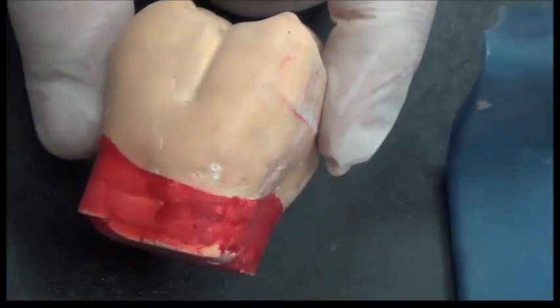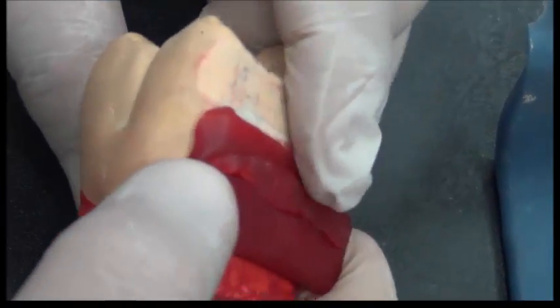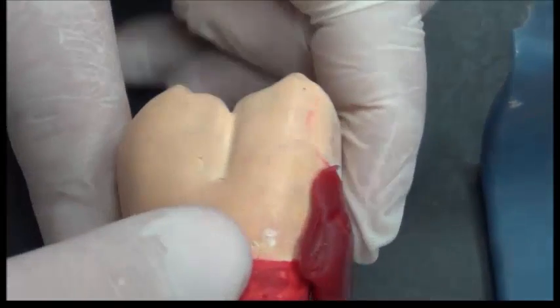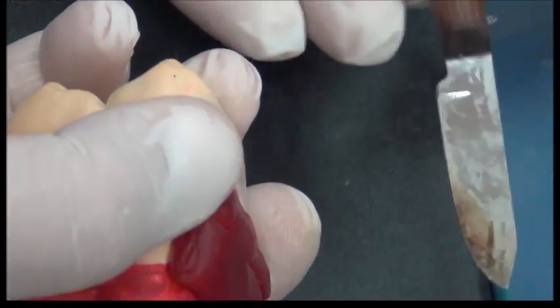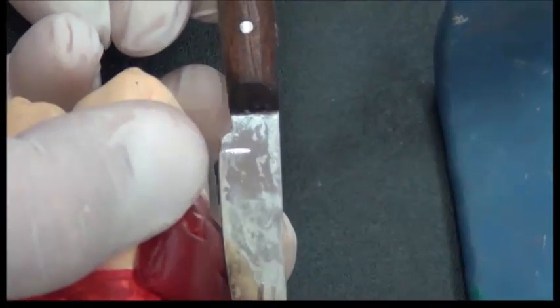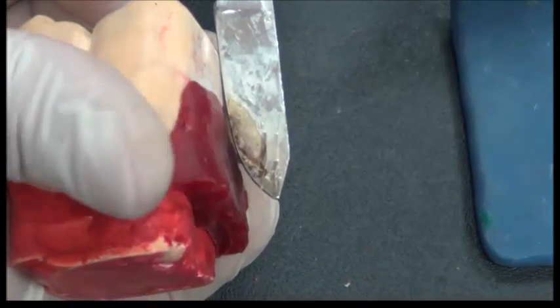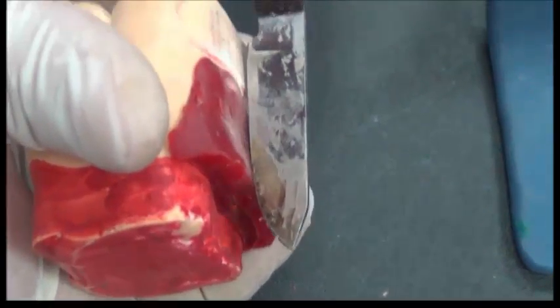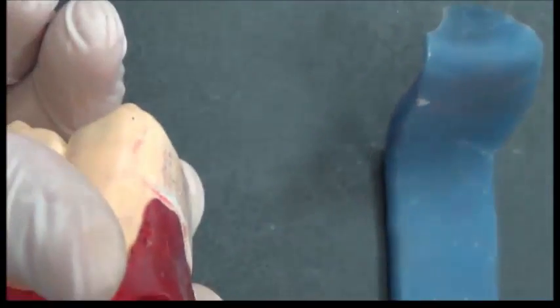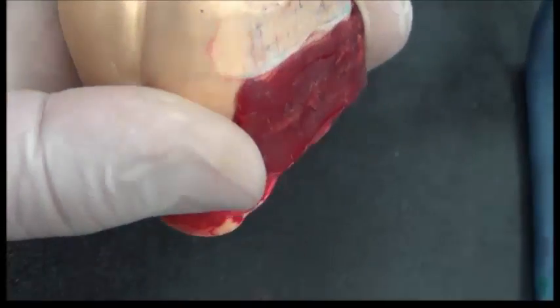If I'm going to add the blockout at the beginning, usually I bring and melt down some wax, but this wax is irregular, bulging, and it's not in the path of insertion. So I need to trim it down using the wax trimmer. Suppose this is the wax trimmer, it will be trimming down this wax. After trimming the wax, we would find that the path of insertion now is parallel with the wax blockout. This is produced by using the wax trimmer of the surveyor.